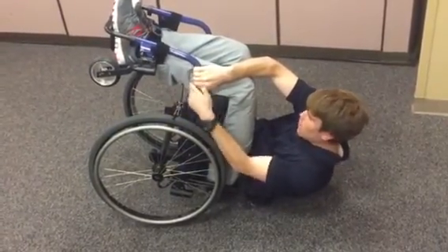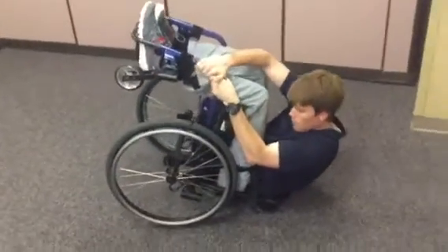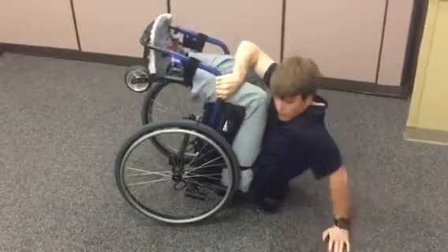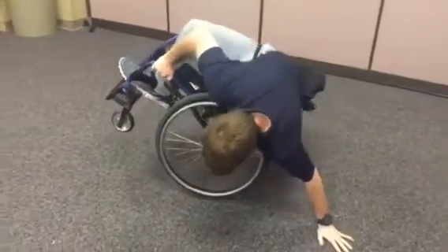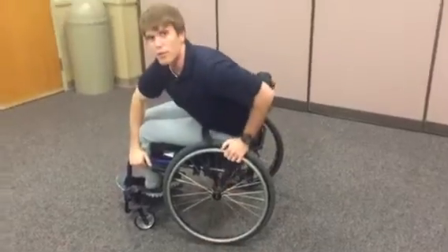What you're going to do is lock the brake, come over, then lock the other brake. Coming back, once you're here, one hand is going to continue to grip the frame as the other hand comes down. You're going to initially lock out the arm, and then as you go, you're going to walk the whole way around, pushing down with the other hand that's on the frame.